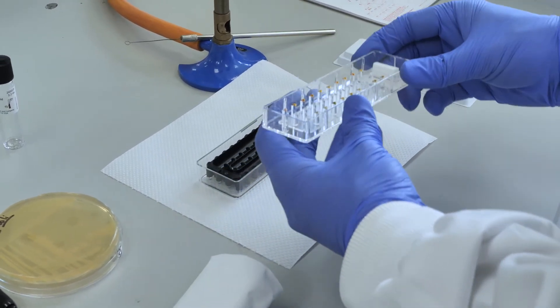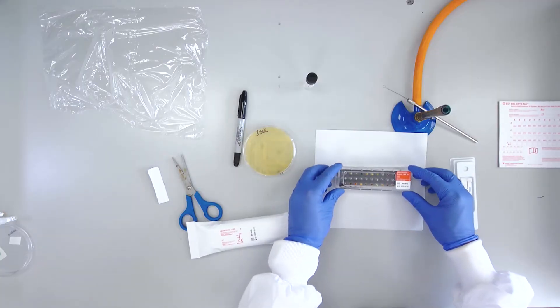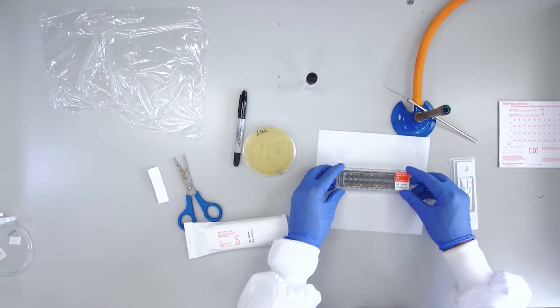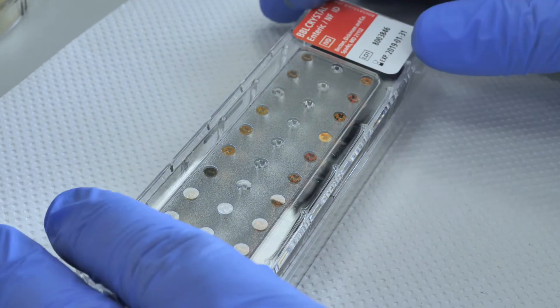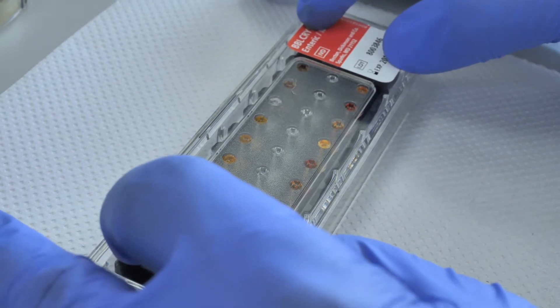Now align the lid with the base. Push down until a resistance is felt. Pushing downwards again, you should feel the lid snap into place with two clicks.